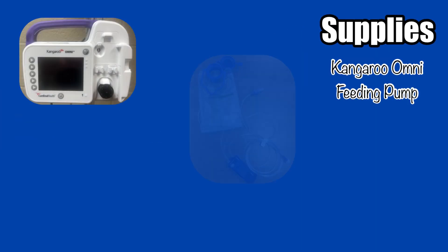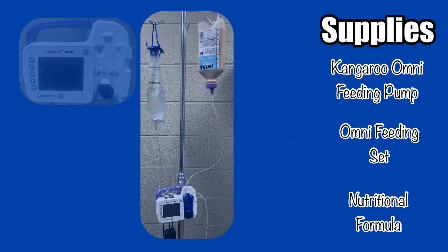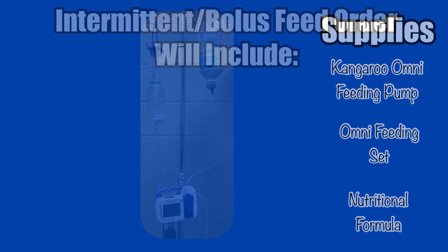Begin by gathering your supplies: the pump, the tubing, and the ordered nutritional formula. Fill your flush bag with water and connect your formula bottle. For more details on this process, refer to the Omni setup and continuous feed programming video.